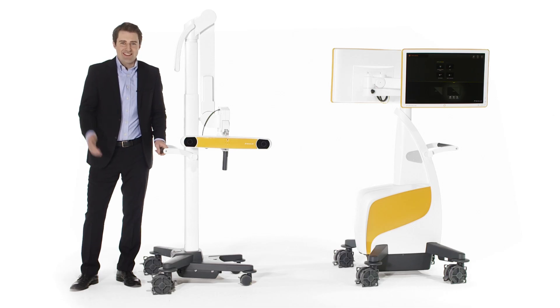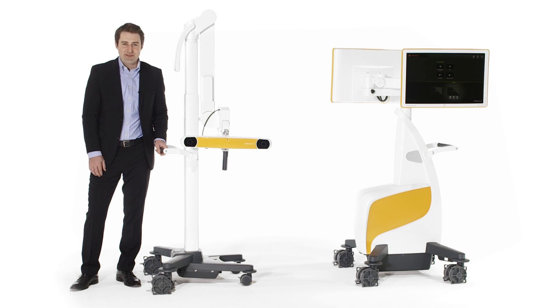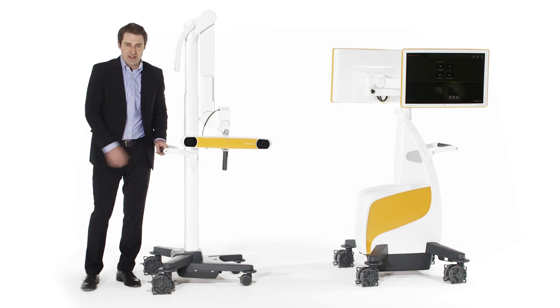After the case, the camera and the monitor cart dock together for transport and storage.